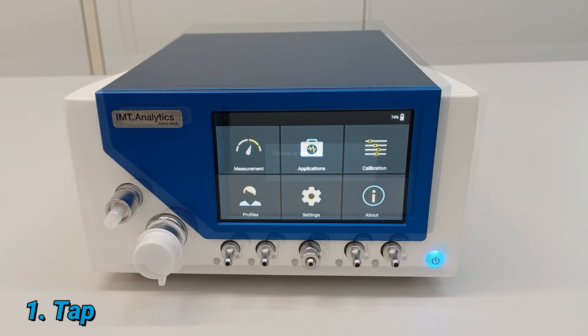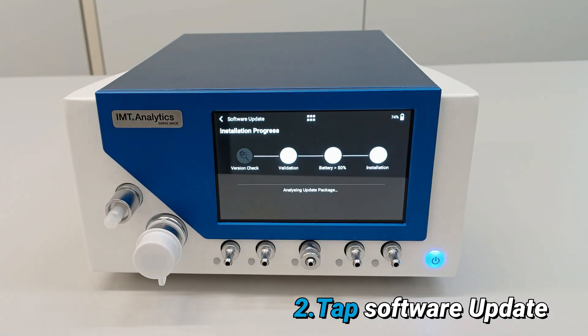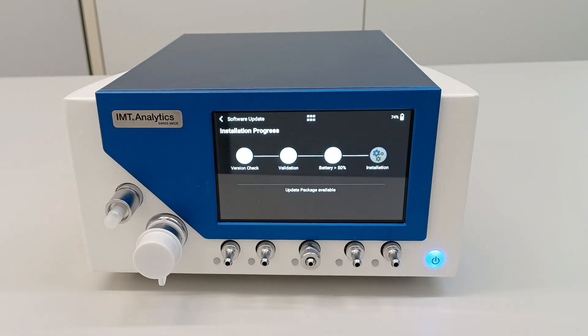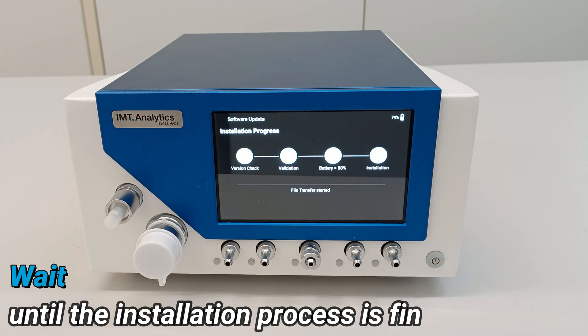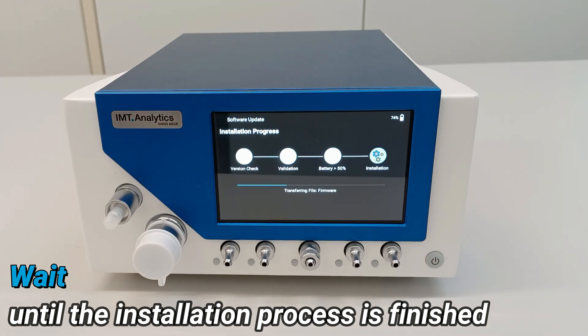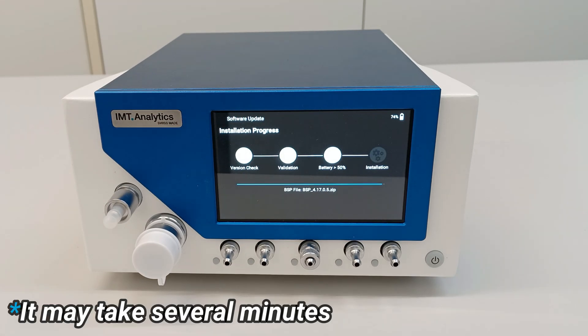Tap About and then tap Software Update. Wait until the installation process is finished. It may take several minutes.